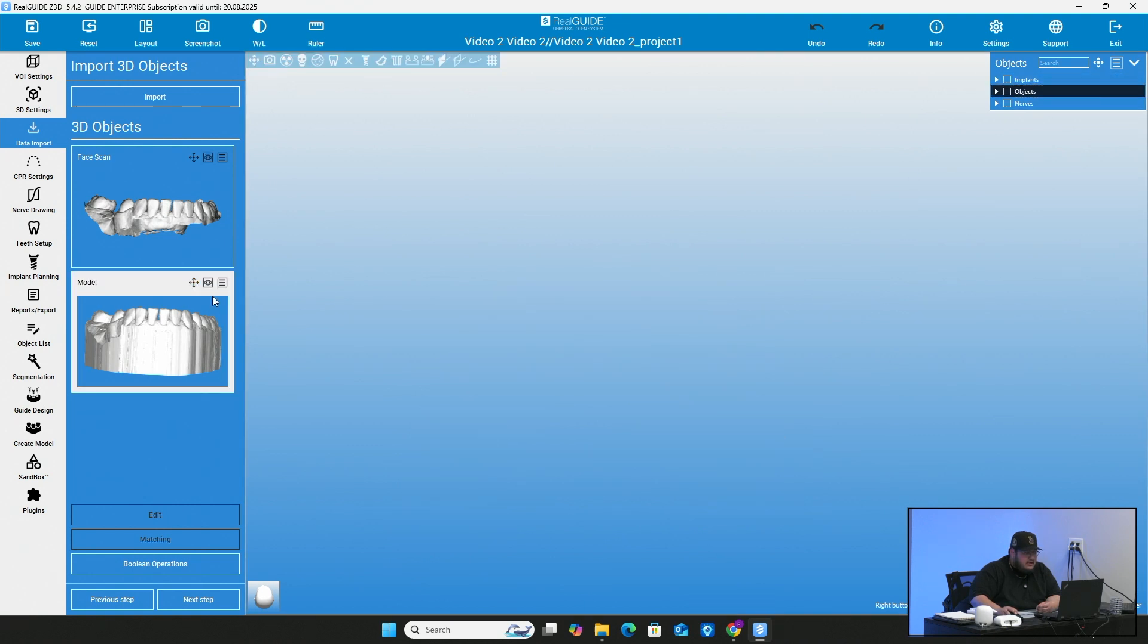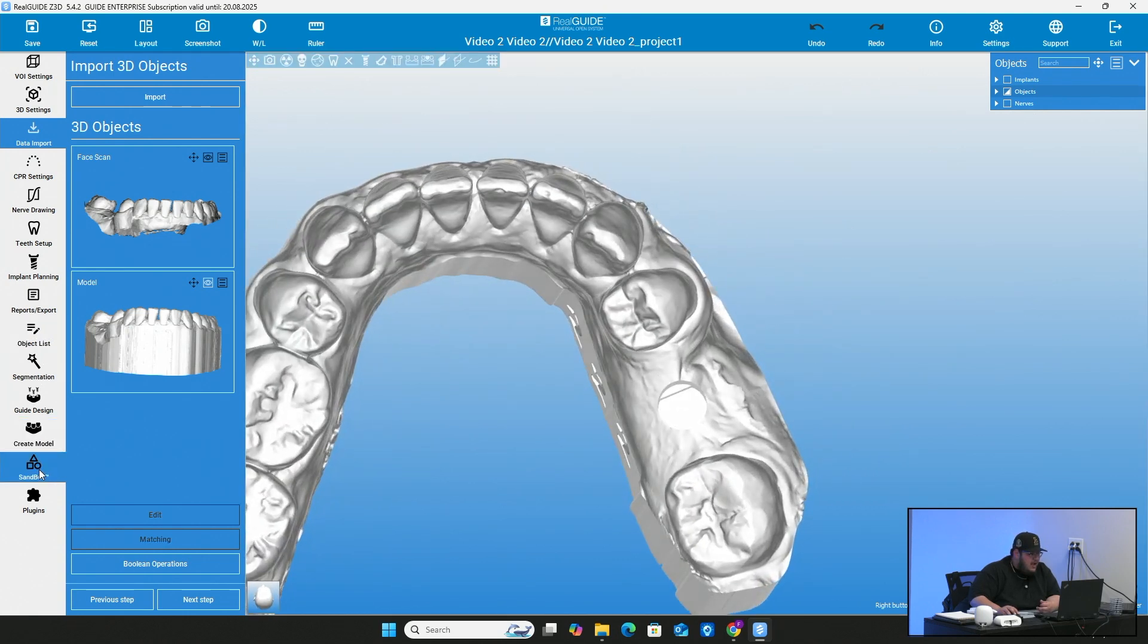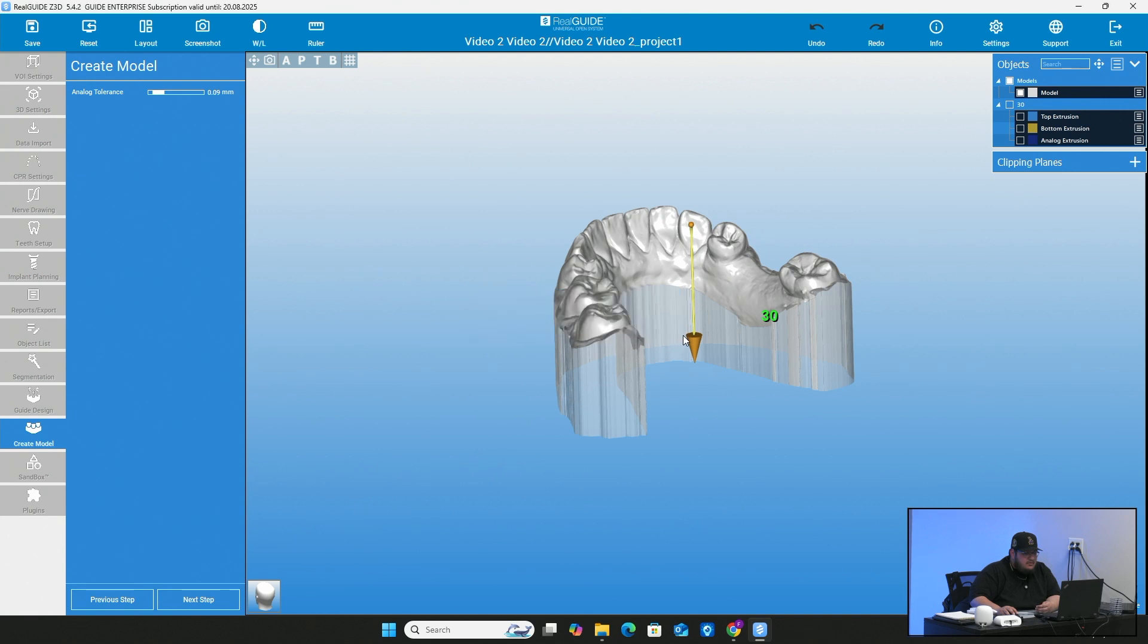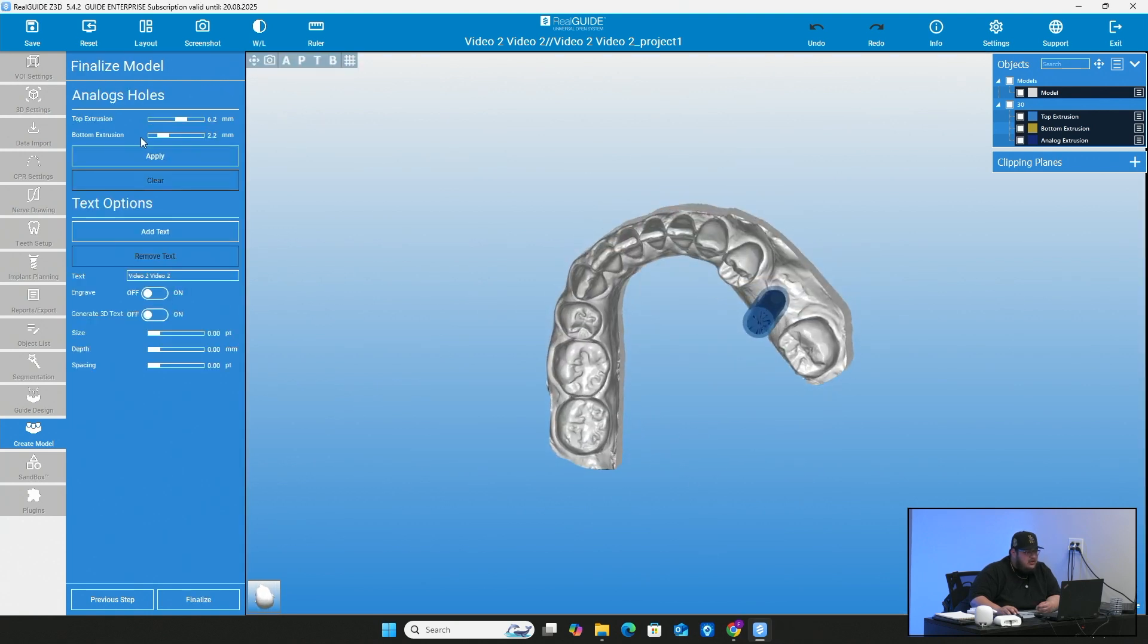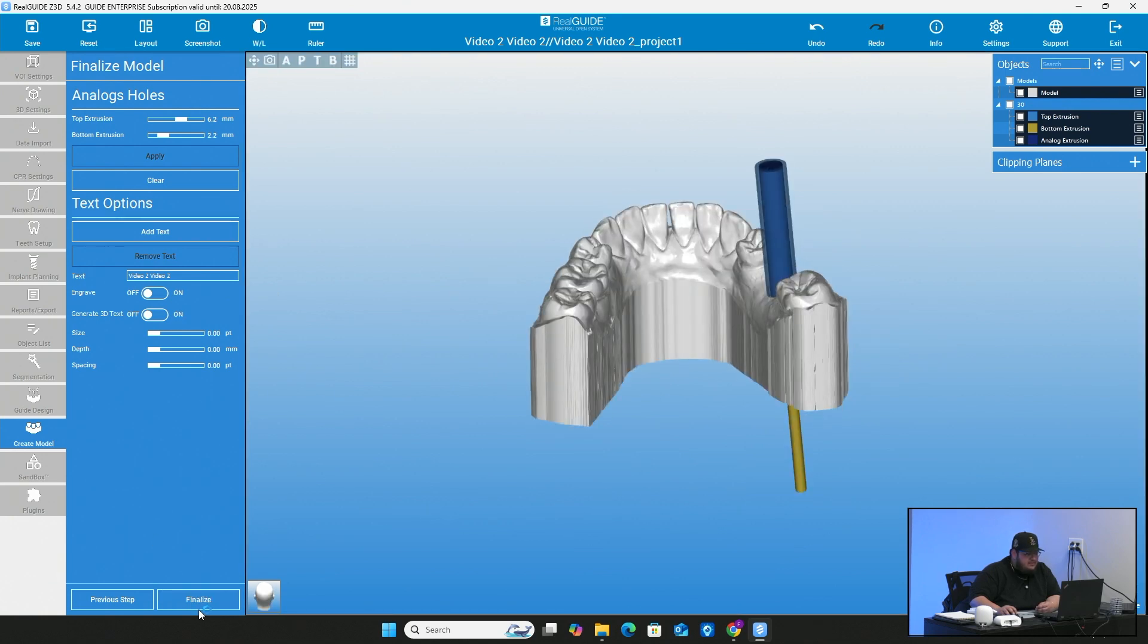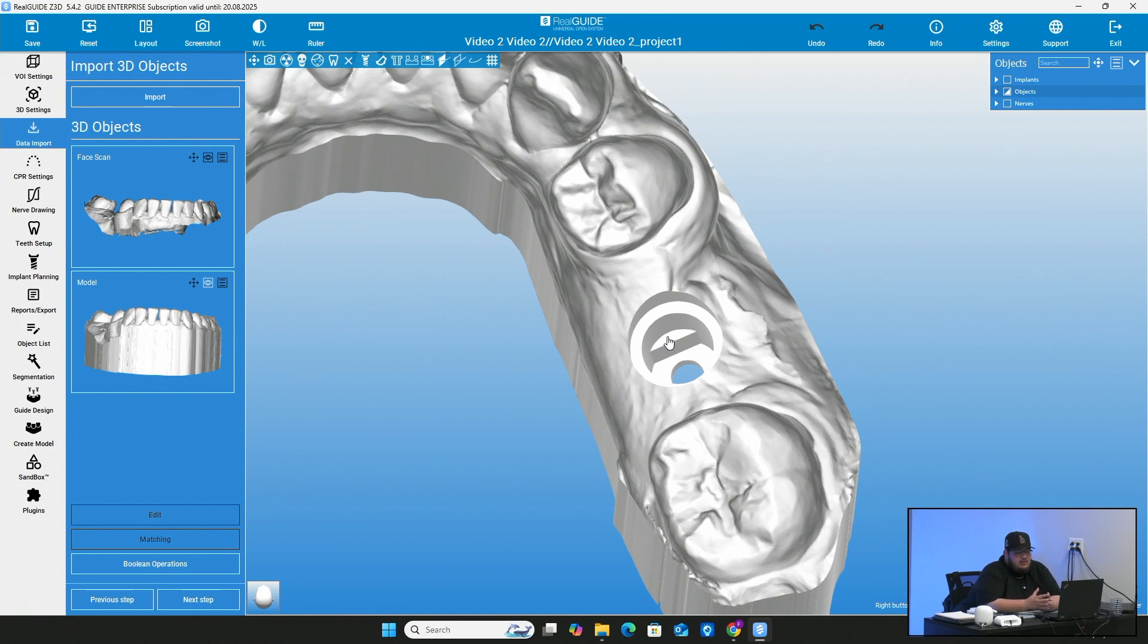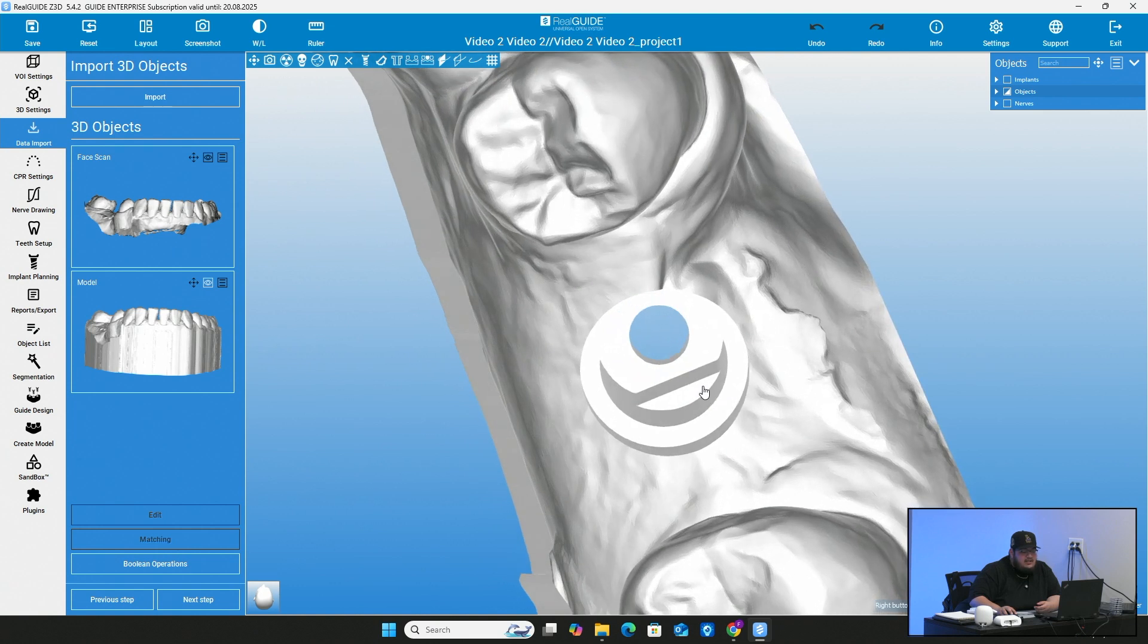So what you also want to do here is on the analog holes, make sure you press apply. It will then of course put in the holes and everything like that for you. So just go ahead and do that. Add your text. When I come to finalize here, it is just like that. It has, as you see, it even has these little ledges. Everything that pretty much how this hole is and the actual format of it is going to be based off whatever implant company you're using. I'm using bio horizon. So this is the shape of their analogs. This is based off the library that is given to real guide from bio horizon.